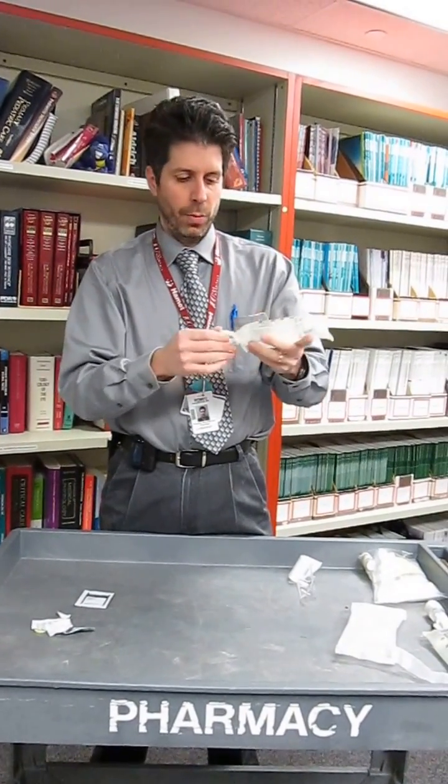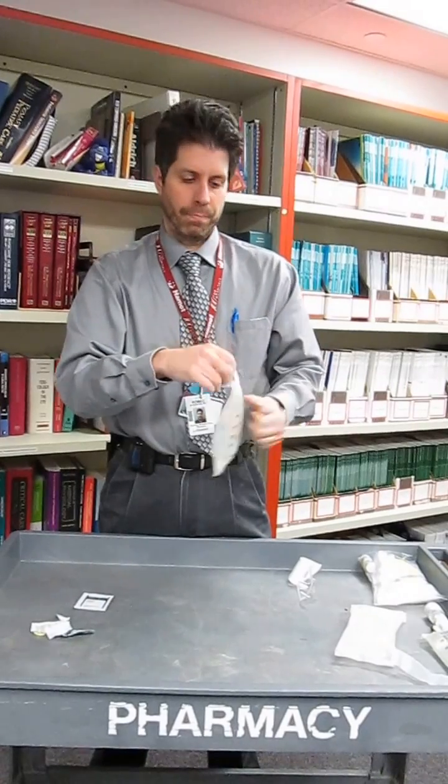Then at this point you would actually use the IV line port, pull this tab off, push your IV line in and then hang it and the medication is ready to go.